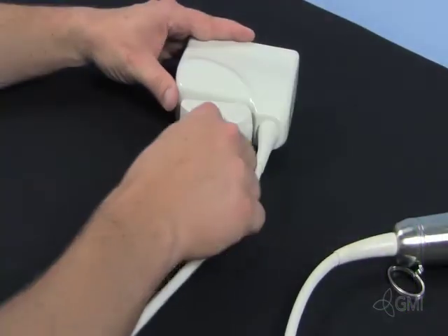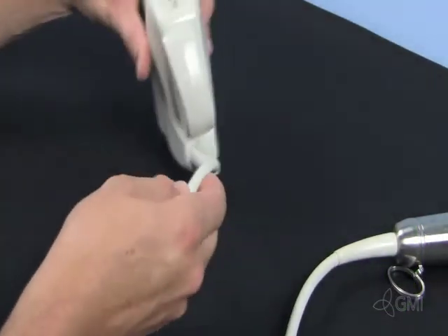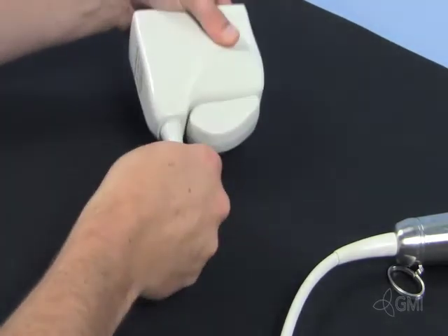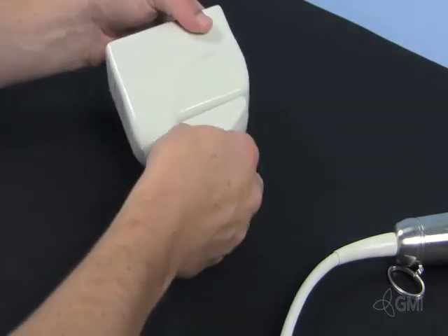Verify all components of the connector by checking the locking handle. Also look for bent or damaged housings, and check for bent, broken, or damaged pins.